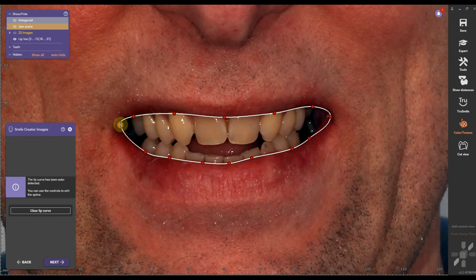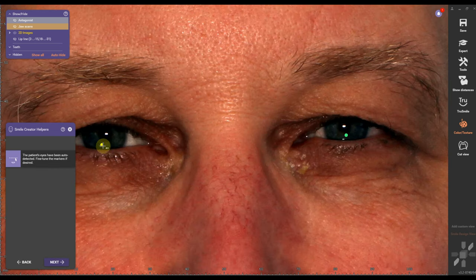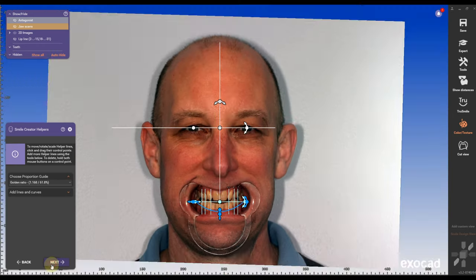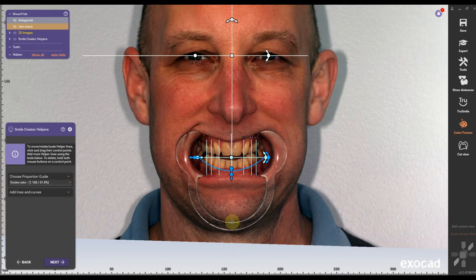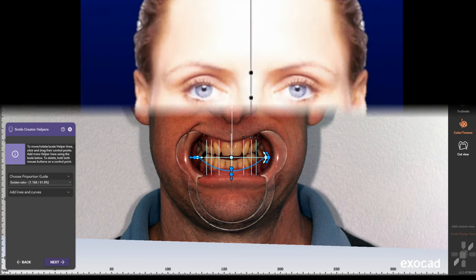That's important because this area is gonna be cut out. Click next and we're gonna move to the interpupillary line. The interpupillary line is one area to determine the facial midline.